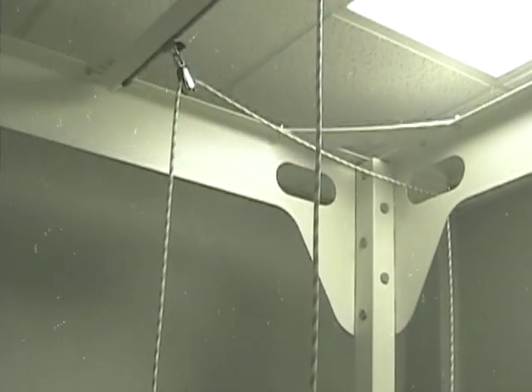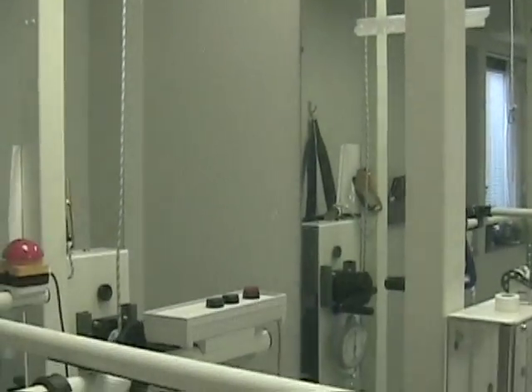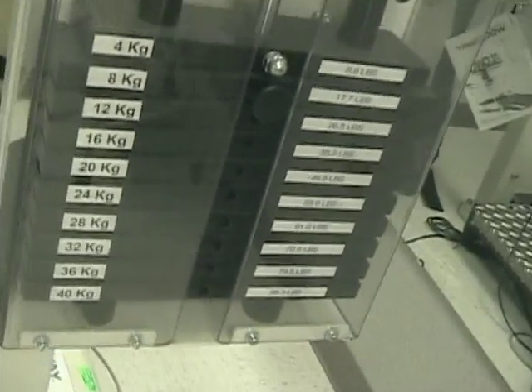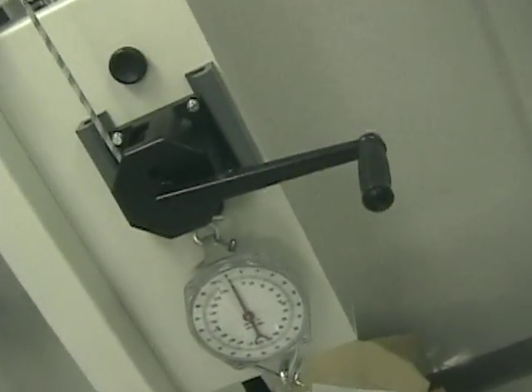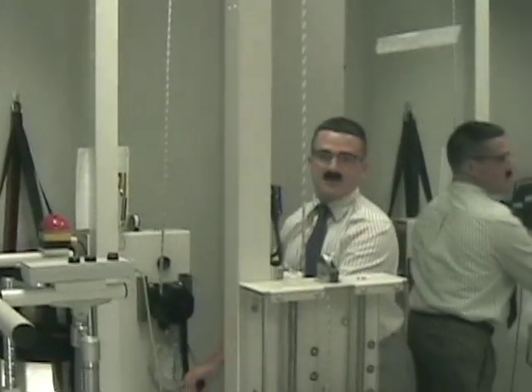Now let's have a look at the LOCO station. The LOCO is a large machine that has great implications for rehabilitation, especially for your neurologic patients. A dual crank and weighted pulley system allows you to provide dynamic support for your patient, allowing you to focus on either the involved or uninvolved side.